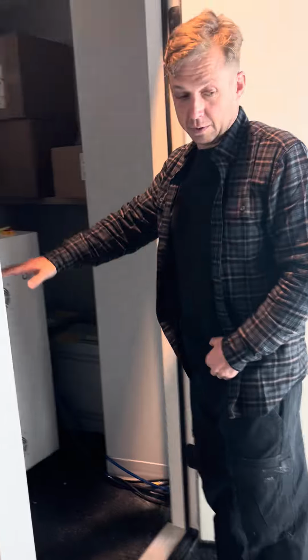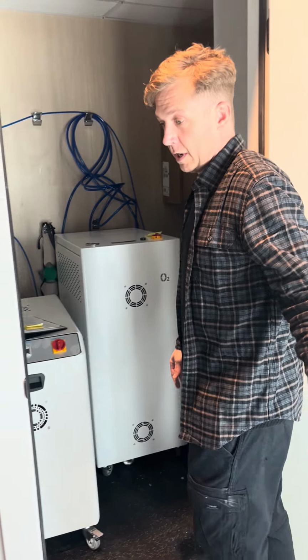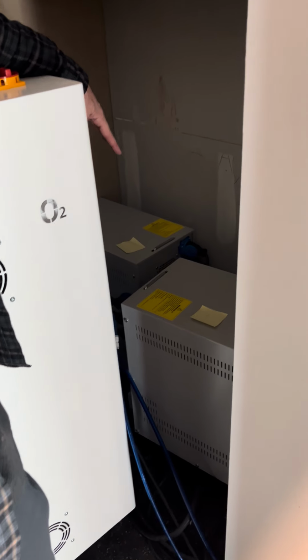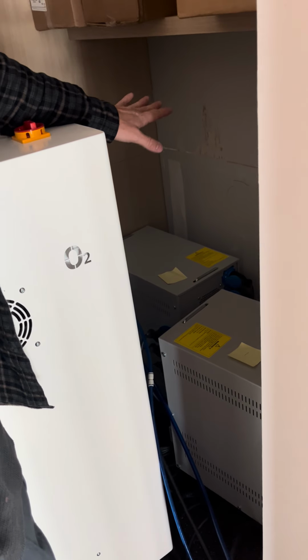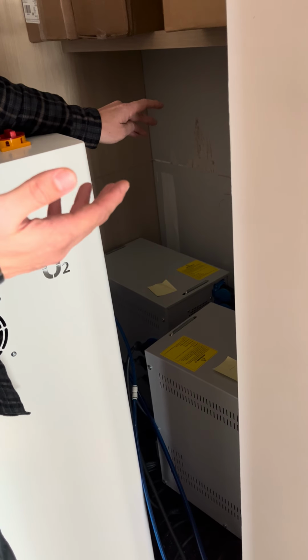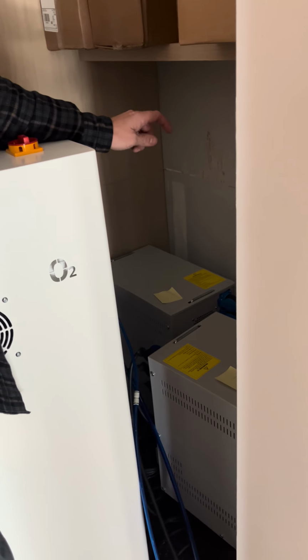Ready? Okay, so we'll start a sequence. We numbered these 1, 2, 3, 4, and then the chamber will be number 5. So switch on the back of these. Don't touch the black dial, leave it set to number 2. Just power up with a switch at the beginning of the day, power down with a switch at the end of the day.